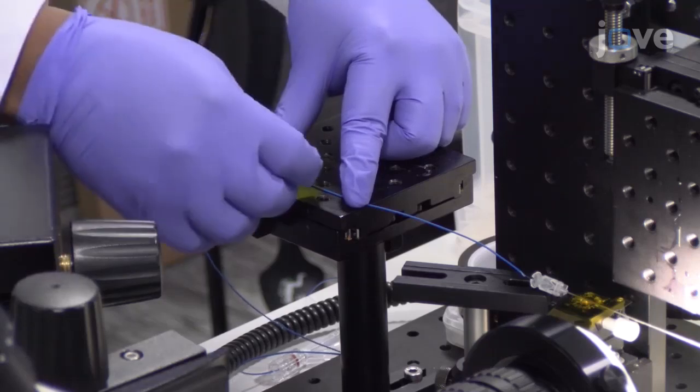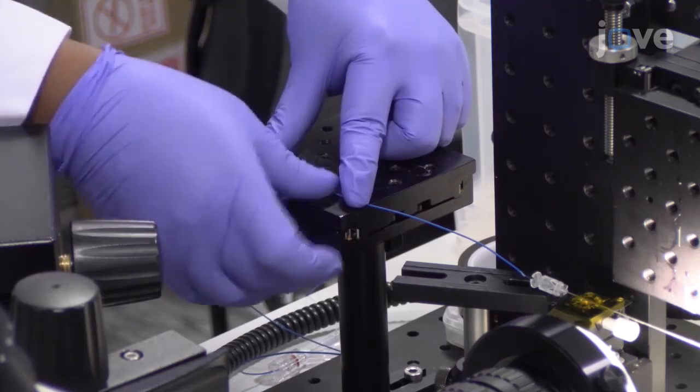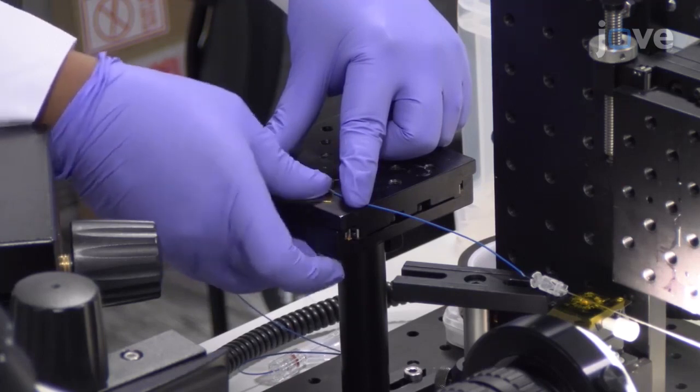Affix the hydrophone to the translation stage with polyimide tape to avoid movement of the device within the needle.